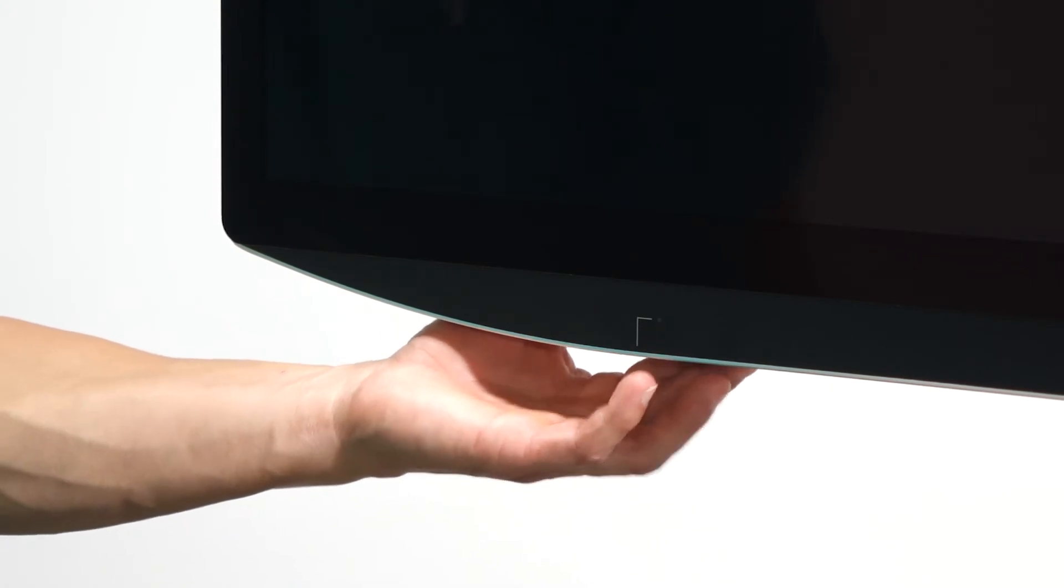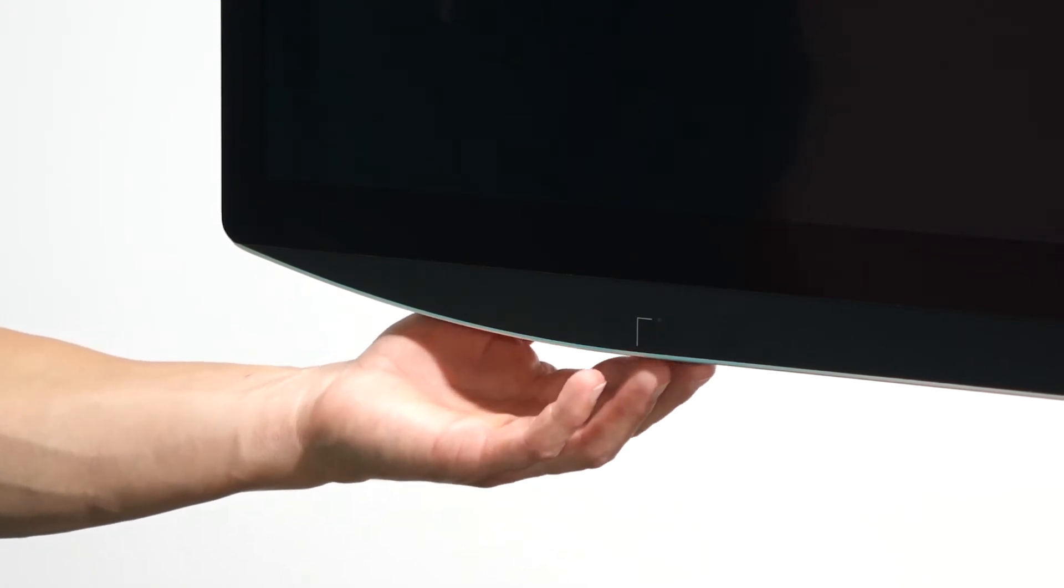Let's configure the external 4K 3D monitor for streaming the video chain from Zeiss Kinevo 900. Switch on the monitor.